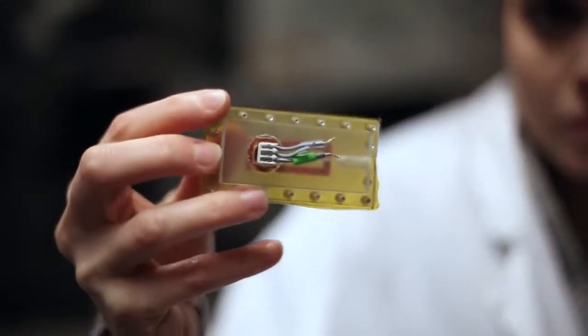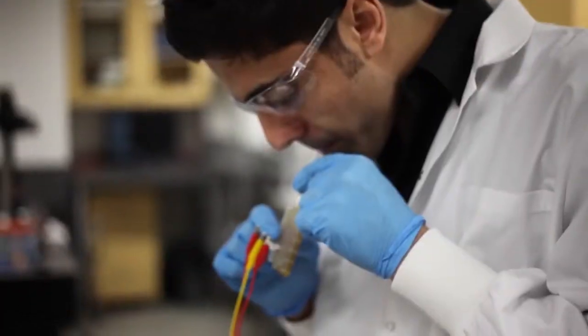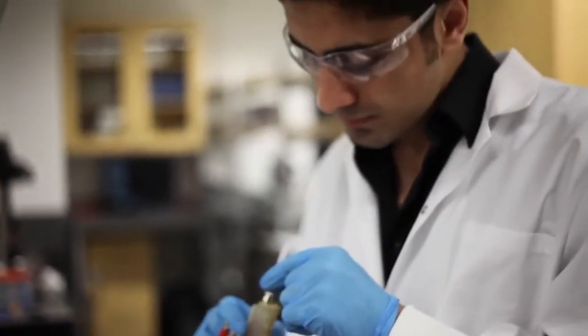This is an example of a sensor that we developed recently in our lab with the aid of NSERC funding. It is a device that can analyze the breath of diabetic patients by measuring the amount of acetone in the breath.